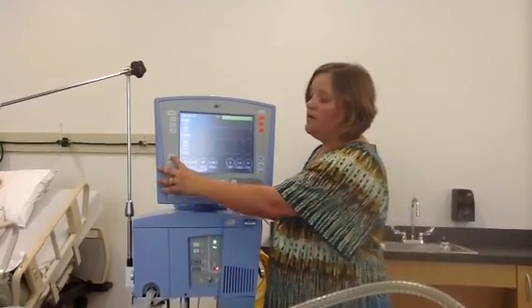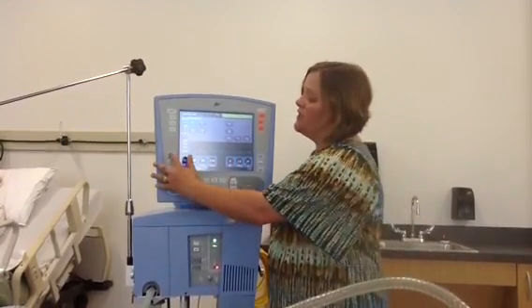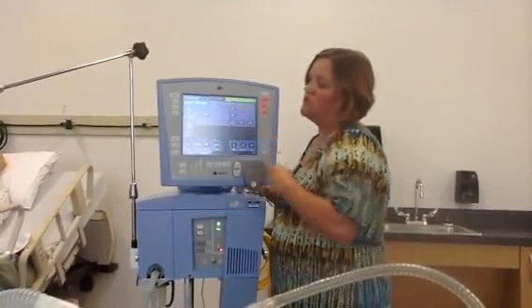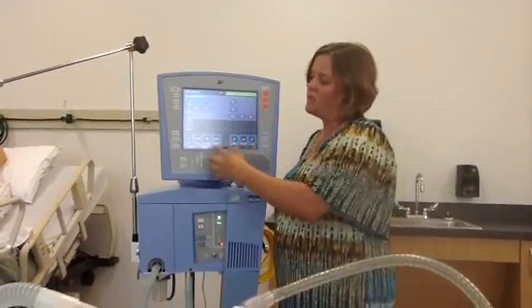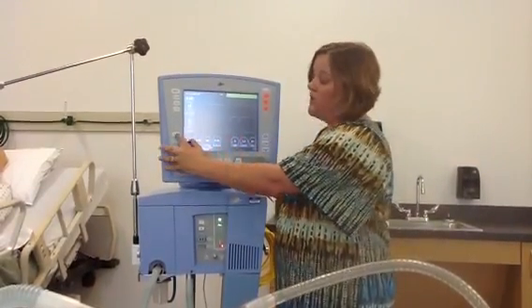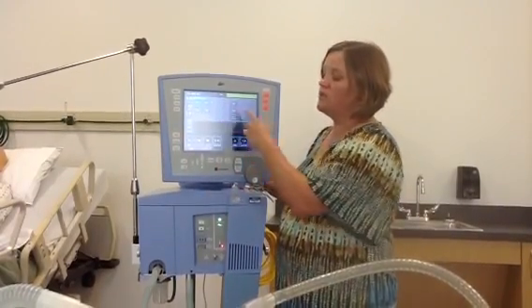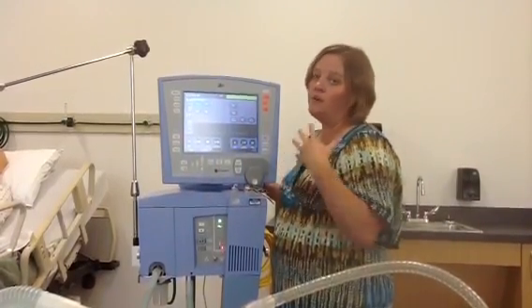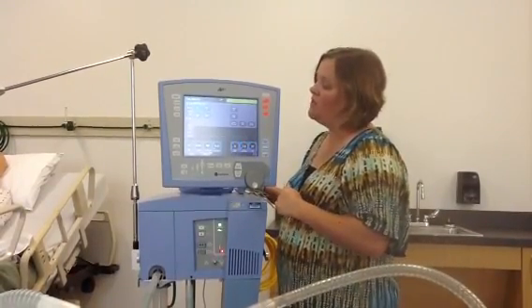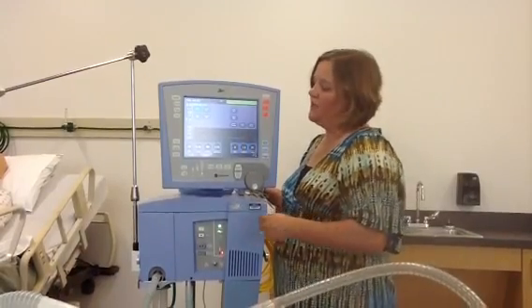This mode button is how you would change modes. There is another way to change modes on this ventilator — instead of pushing the mode button, you could use the touch screen up here; it brings you to the same screen. For this purpose, I'm going to use the soft key as our mode. There are a lot of different modes on the AVEA ventilator — definitely content for another in-service video — but these are the modes available on this ventilator.